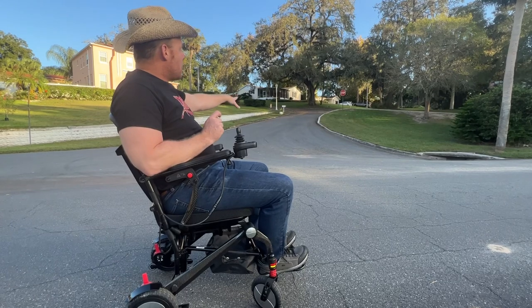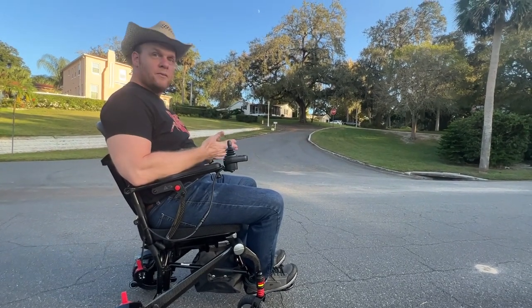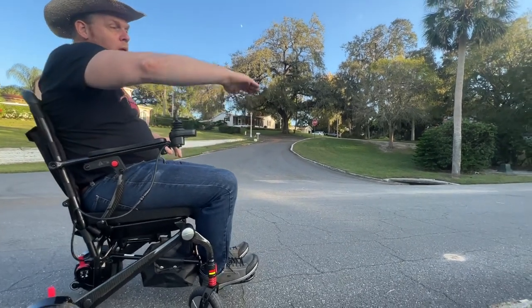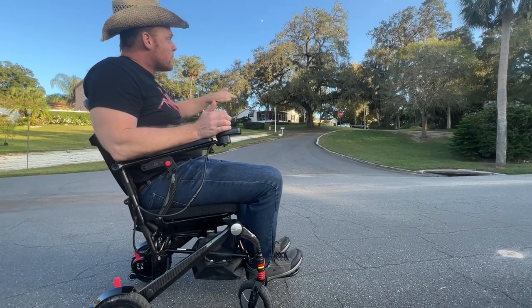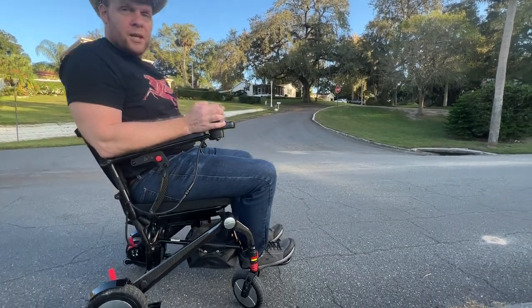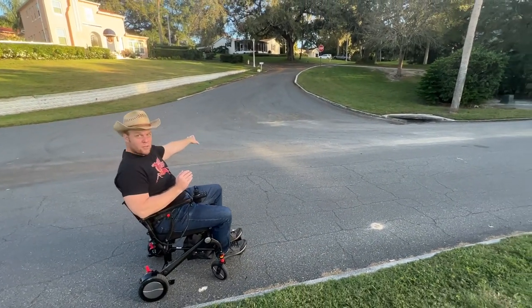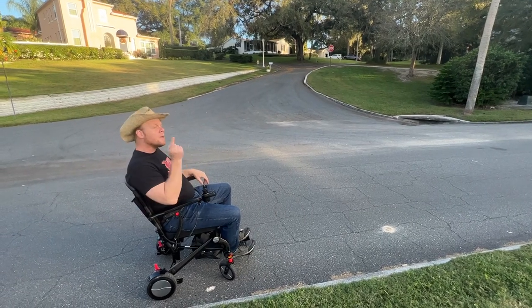Let's see how it handles uneven terrain. For those of you who are in wheelchairs on a consistent basis, you know the challenges of going through peaks and valleys and uneven areas — you know chairs can slide and all the pitfalls that can happen. I haven't rehearsed this, I haven't done this in this chair. I'm just telling you the truth; it's unedited, it's uncut. Here we go.